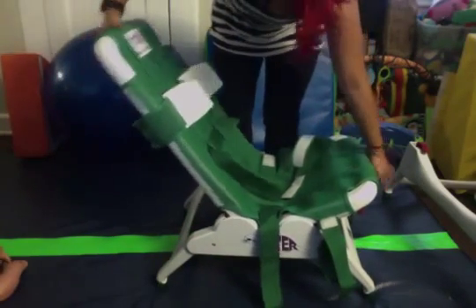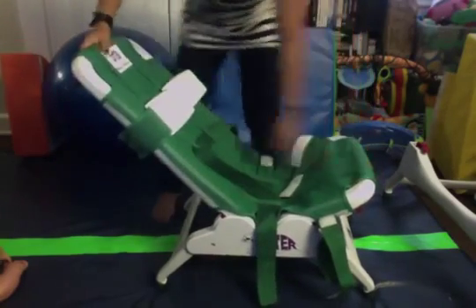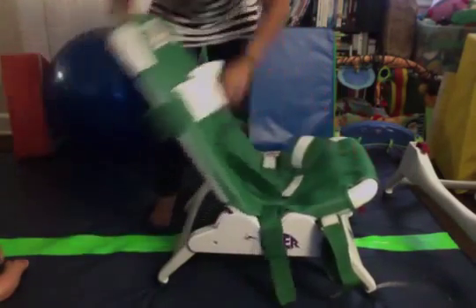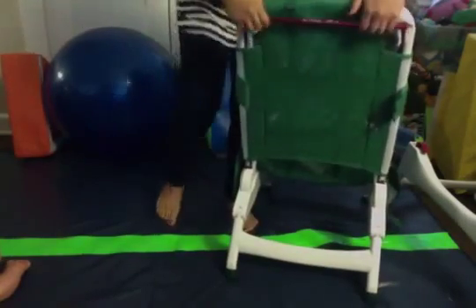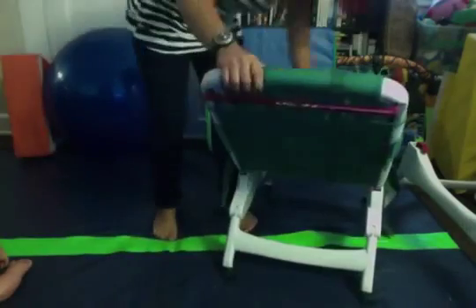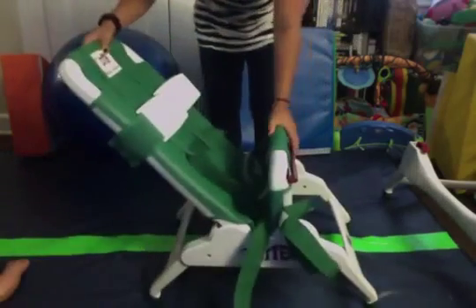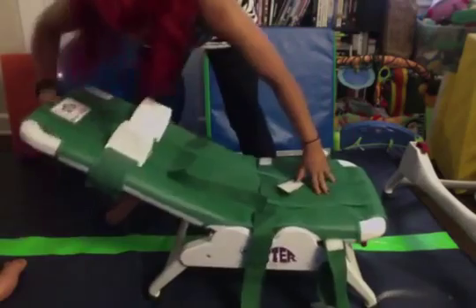What we have here is a fully adjustable bath seating system. You can adjust the back all the way back and all the way up. There's a red lever on the back — you pull up and that lets the seat go all the way down or all the way up. Same with the lever underneath, so you can pull it very upright or lay it completely flat.